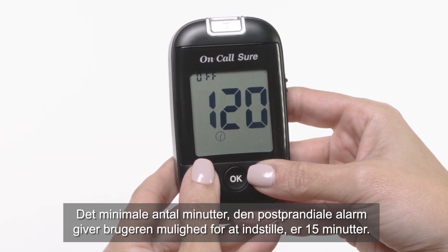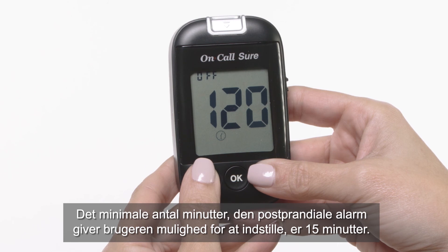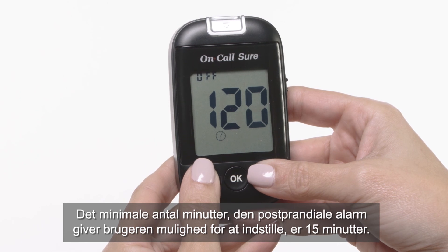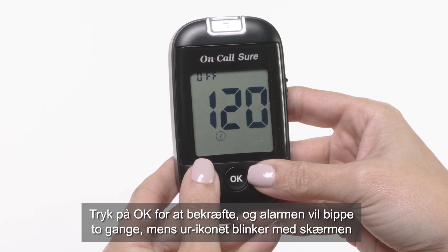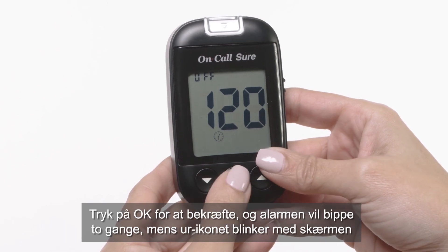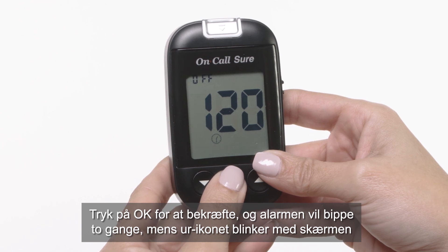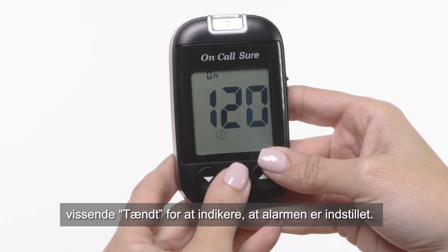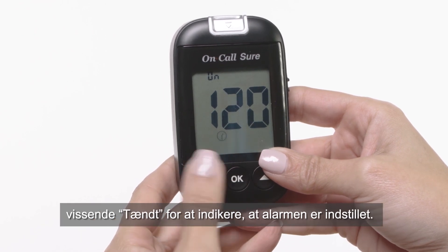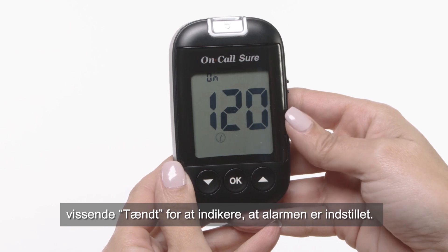The minimum number of minutes that the post-prandial alarm allows the user to set up are 15 minutes. Press OK to confirm and the alarm will beep twice, with the clock icon flashing and the screen displaying 'on' to indicate that the alarm has been successfully set.